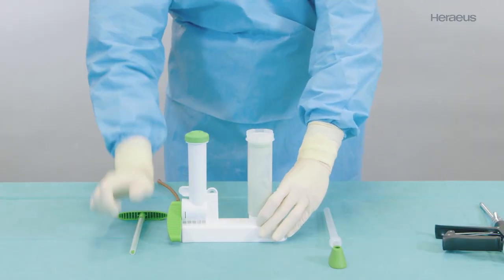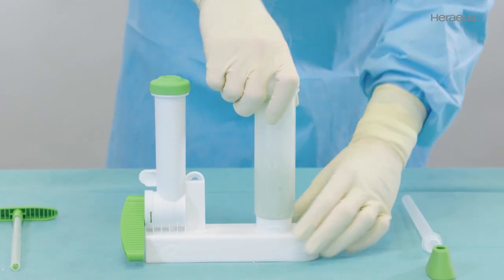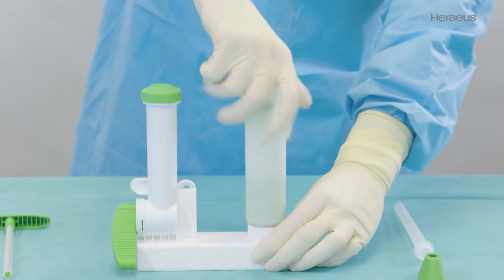To remove the cartridge, press the cartridge securing device down and unscrew the cartridge. Application.